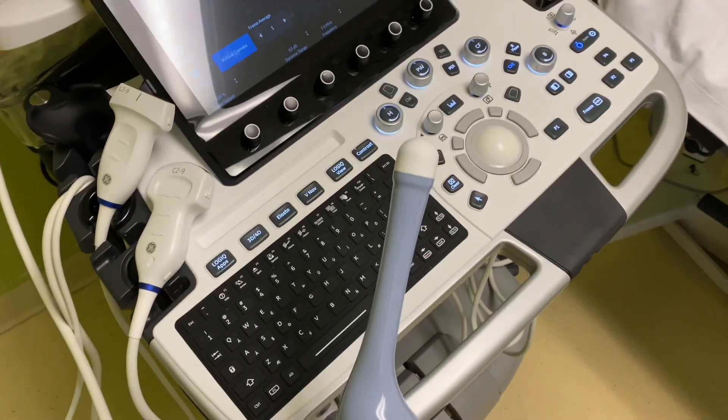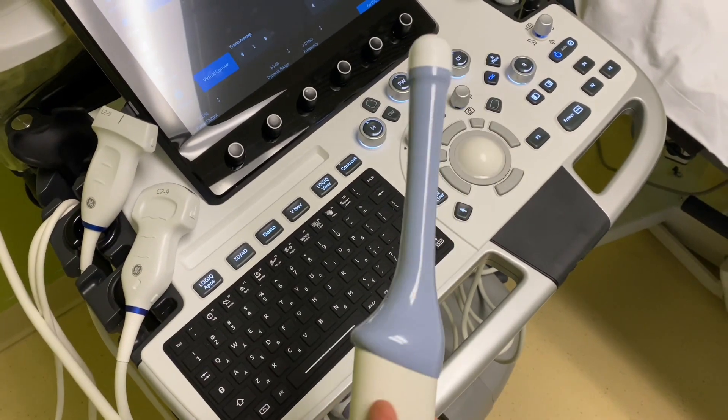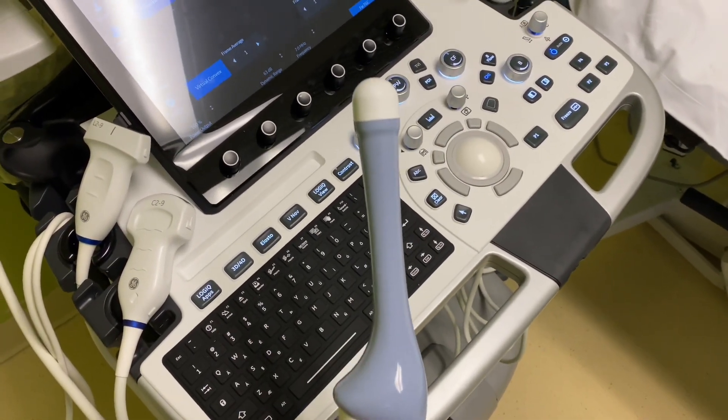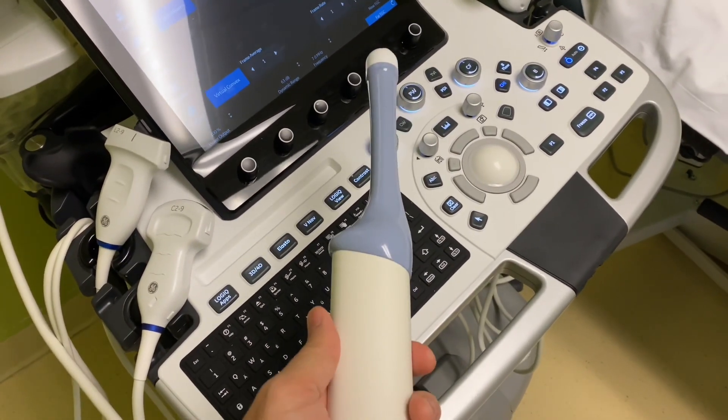I haven't used this at all. We work in pediatrics, so I don't really use this. I guess maybe this machine's a demo, I don't know.